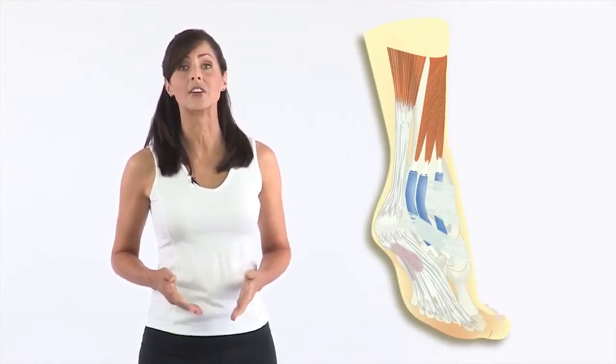If you're suffering from plantar fasciitis, Achilles tendonitis, or heel pain, the Aircast Air Heel can help. Here's how it works.